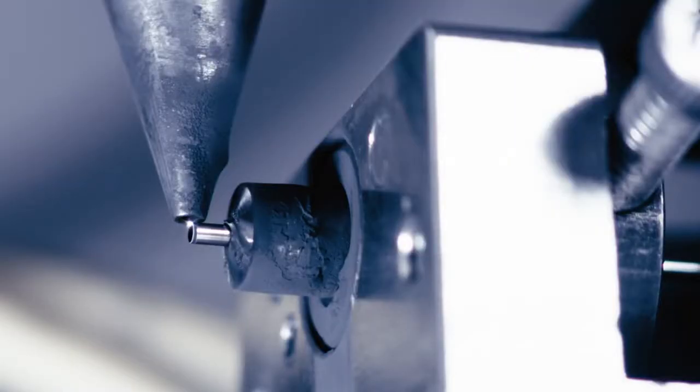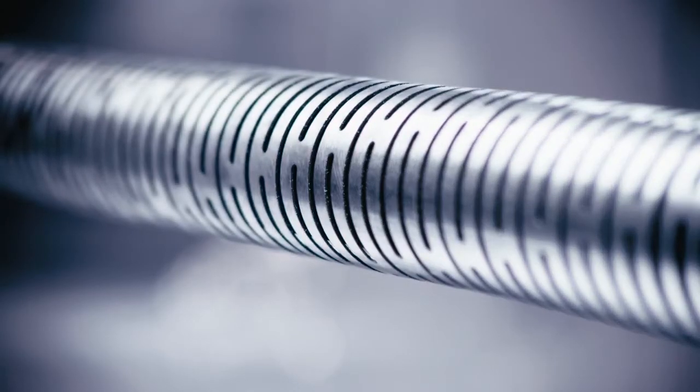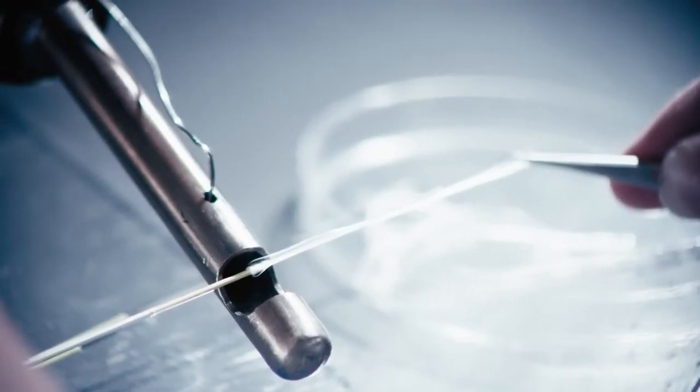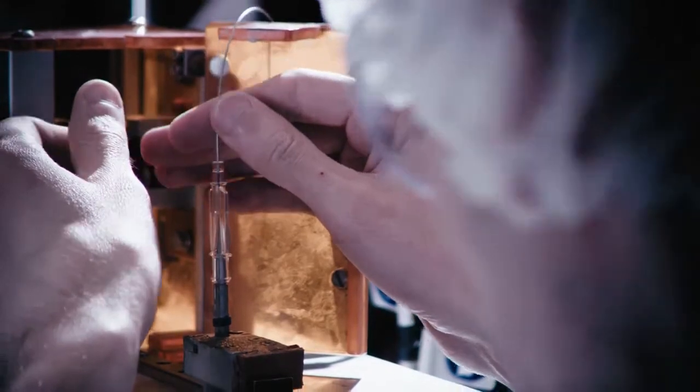Carefully calibrated spacing of these cuts allows us to offer the optimal stiffness profile, achieving a balance of pushability to advance the microcatheter with the softness needed to reach the most distal anatomy.